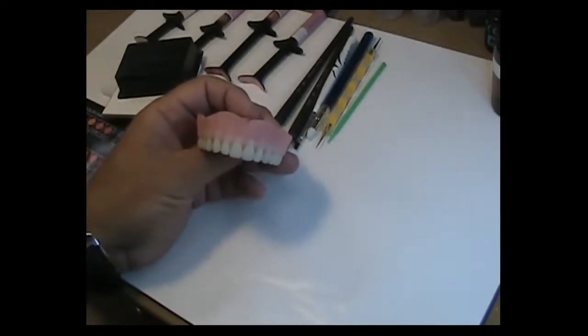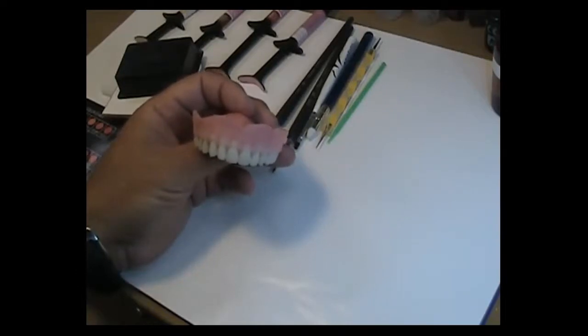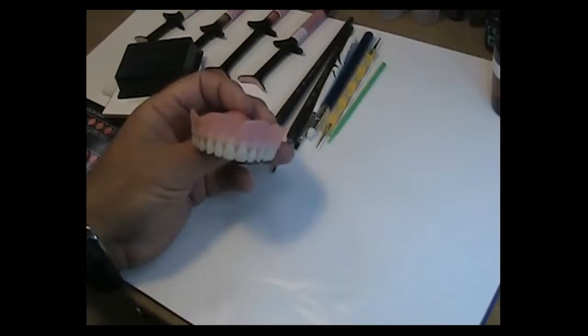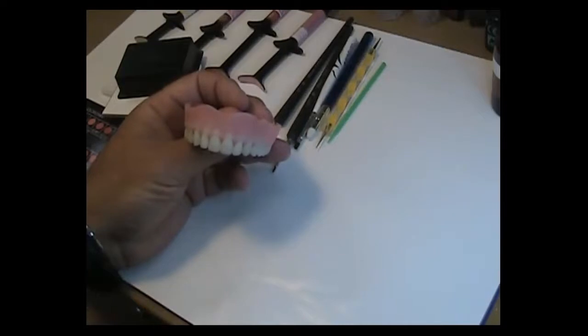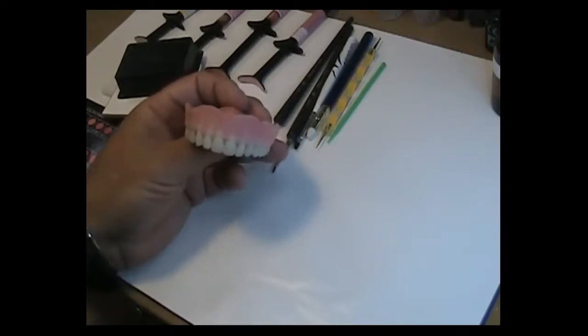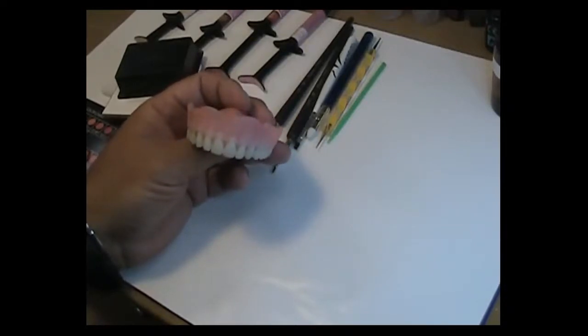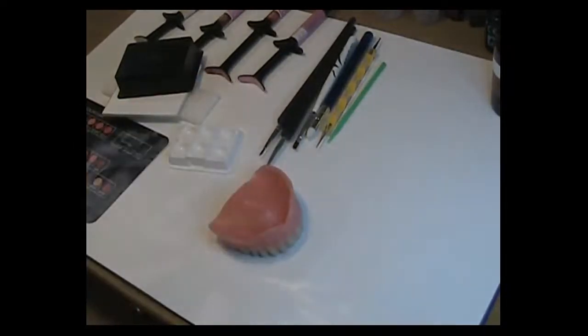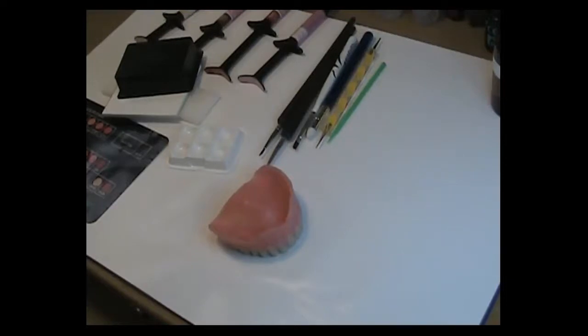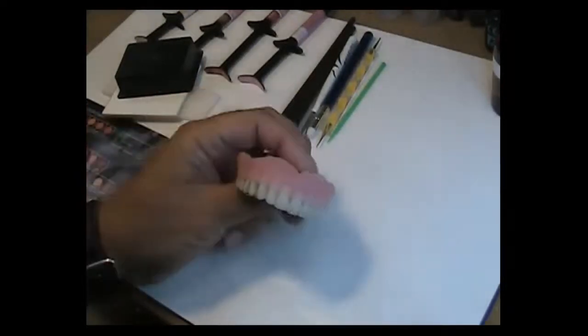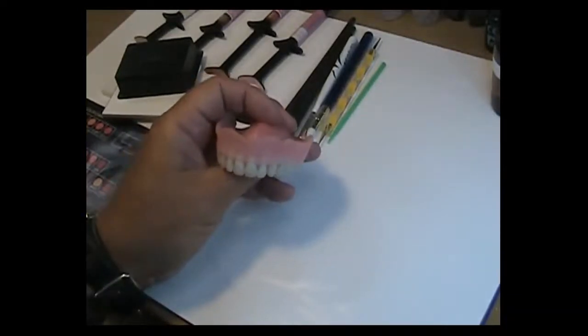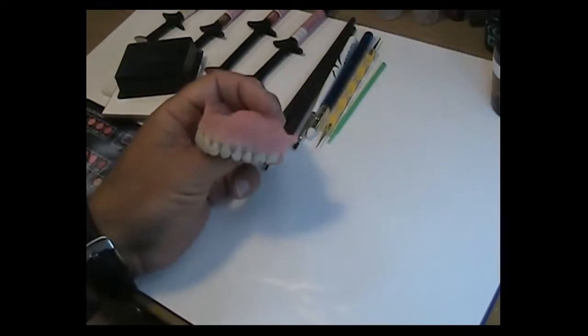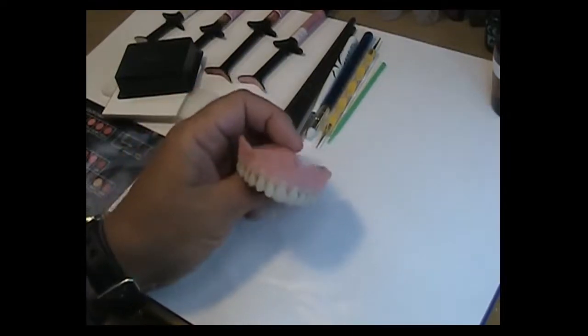The entire area that will be receiving the composite, the Gradia gum composite material. The type of material I use for air abrasion is the Renfert, I think it's 50 micron. Hang on one second, I can check right here. Yes, 50 micron Cobra. That's Cobra 50 micron Aluminus Oxide. I'll treat that surface just to give it a nice matte finish which is the accepting layer.